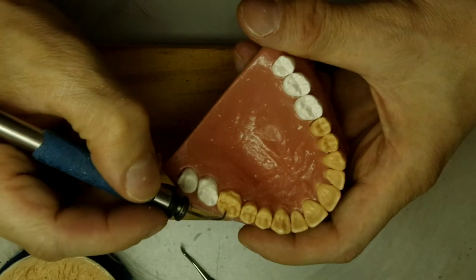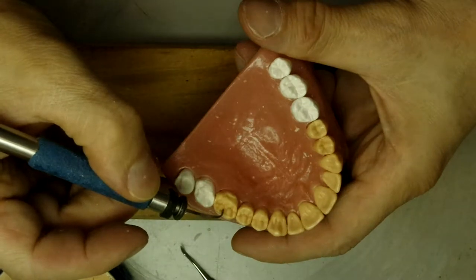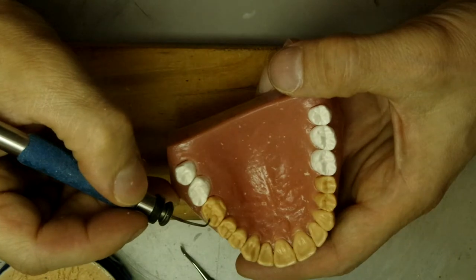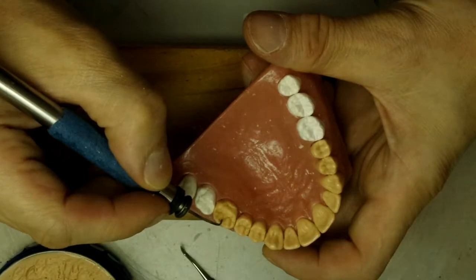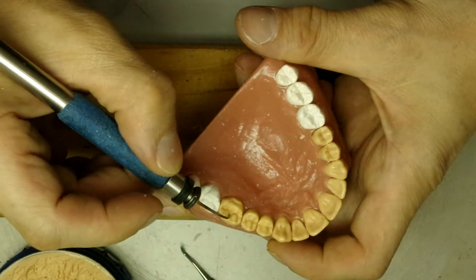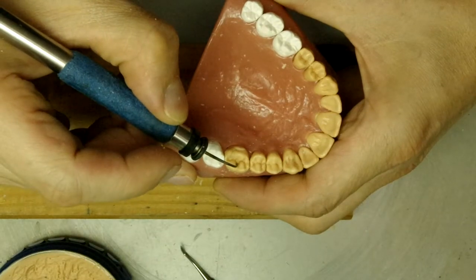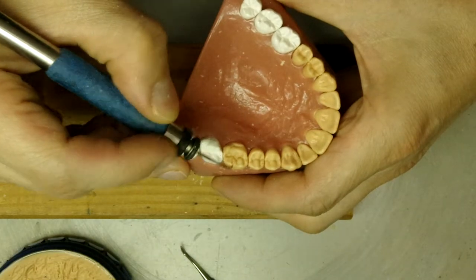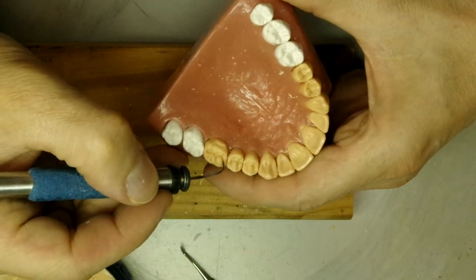Remember, you have to be very careful when you do this. This is where an electric waxer comes in handy. The application of heat is the key to this whole thing, so let's fill this in a little bit.